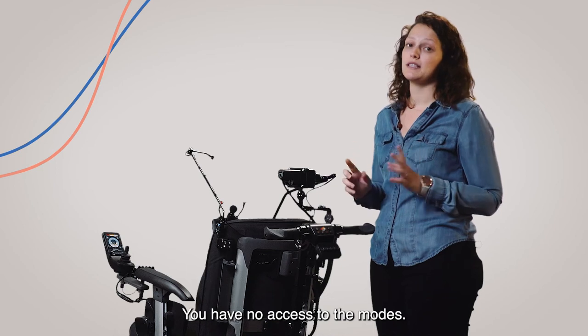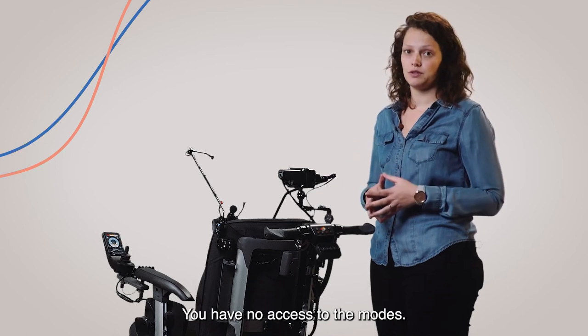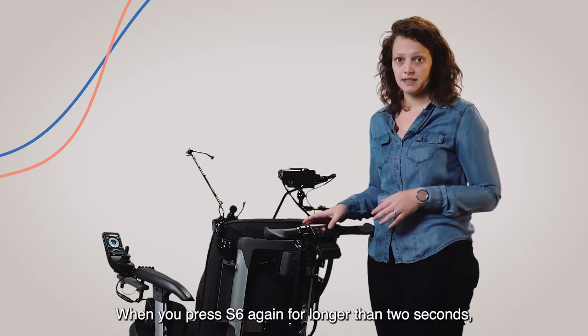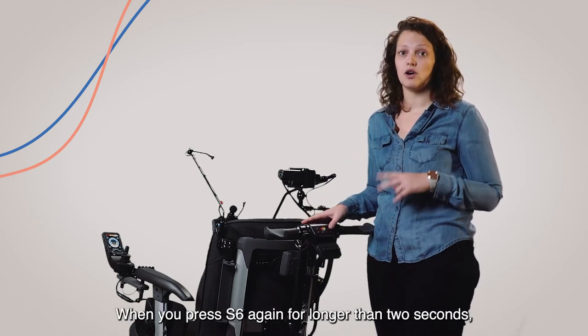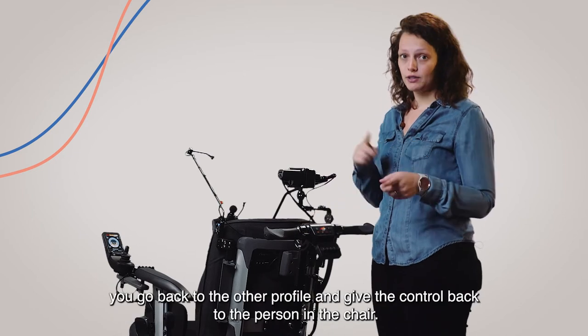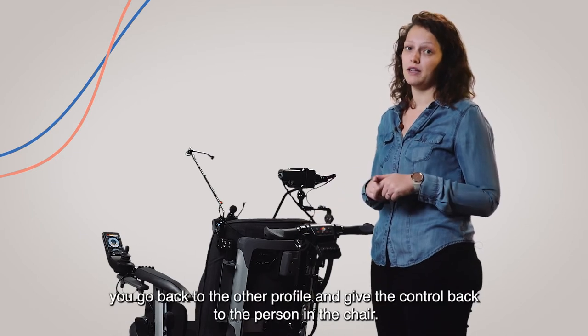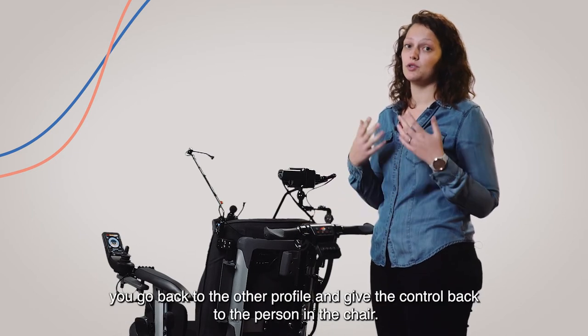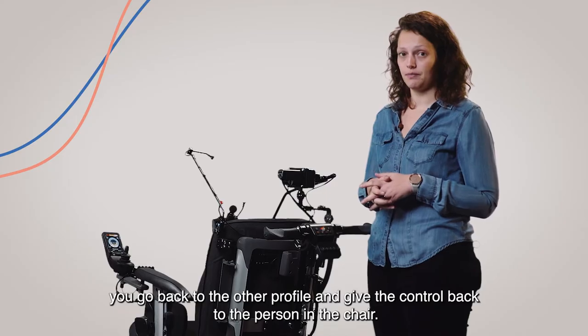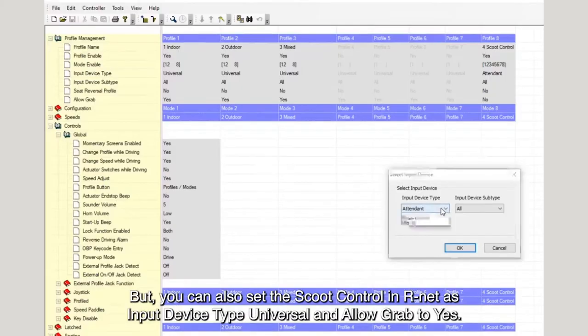You have no access to the modes. When you press S6 again for longer than 2 seconds, you go back to the other profile and give the control back to the person in the chair.